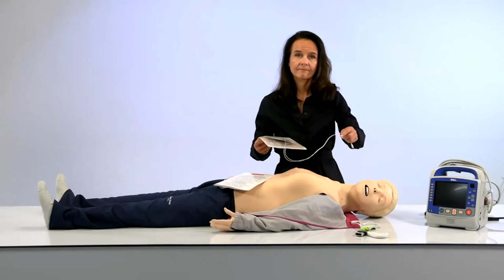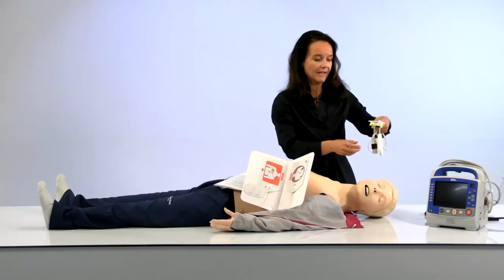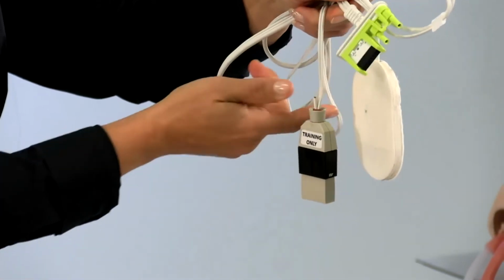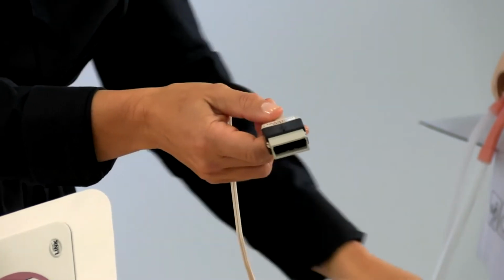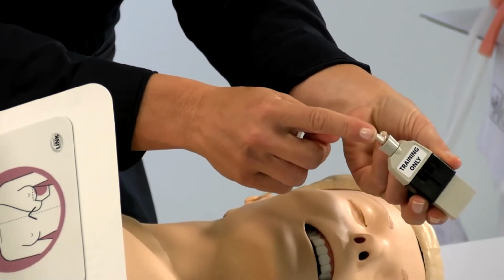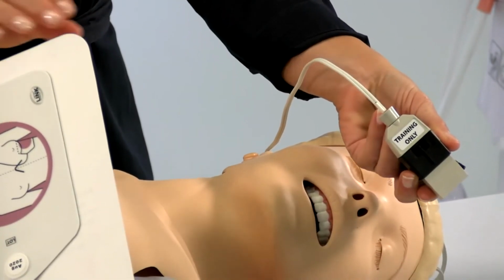Perfect. So just diving a little bit deeper on that topic, another question. So what Zoll defibs are compatible with this setup? Yeah, it's actually all the Zoll defibs that have this cable. I think this cable comes in 2 different versions. I've seen 2 different connectors, but what it needs to have is this simulator interface. This is the specific interface to the Zoll adapter that we provide. And here you can even see my team ruthlessly cut off the Zoll pads that came with this cable, because we are using these pads instead.